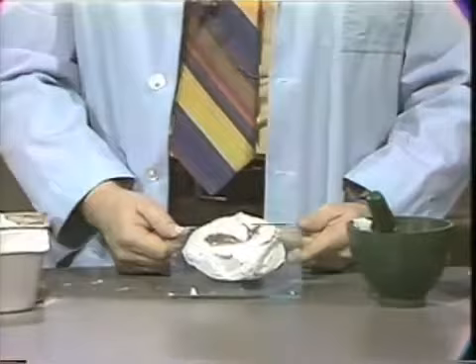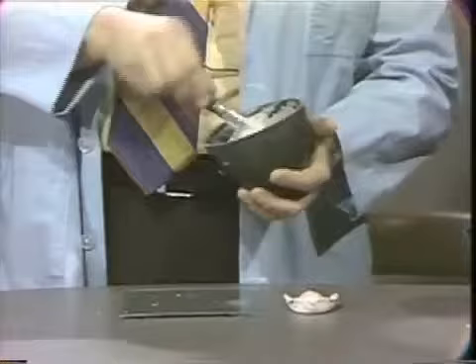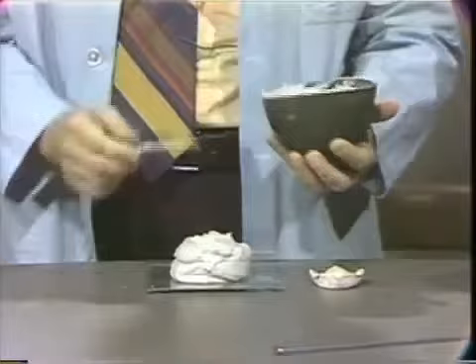Now this one is about done, and I'm not going to trim this yet. In the interim time, I'm going to come back in a few moments and show you how to do this with the maxillary impression. I've already begun to make the second mix of pumice and impression plaster. You'll notice the mandibular impression was a rubber base impression, and the maxillary impression is a zinc oxide eugenol impression. This method can be used for either material.